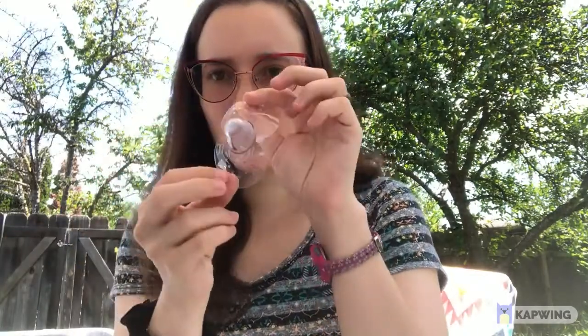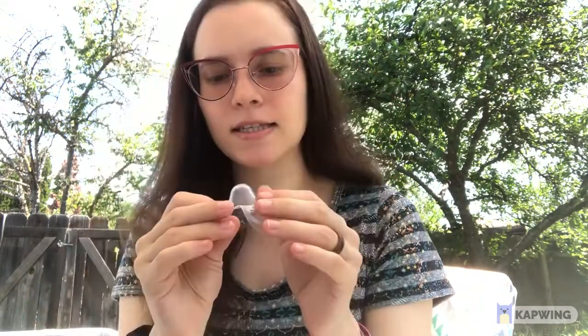The next one I tried a couple times and didn't really like is the Mam. When I was looking up nipple shields this was one of the top results, which is why I got it. It comes in a cute little white case — very convenient. I kind of like the butterfly shape, where the lower lip and upper lip can touch your skin and get more skin time. It also has little bumps on it, and instead of holes it has two slits, like cat-eye lines.